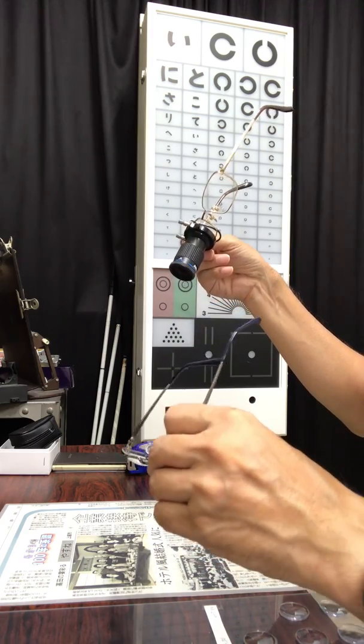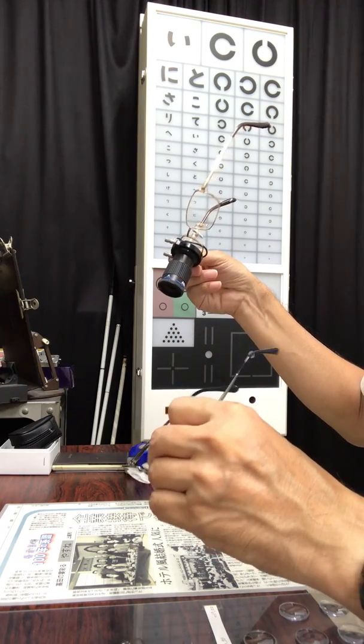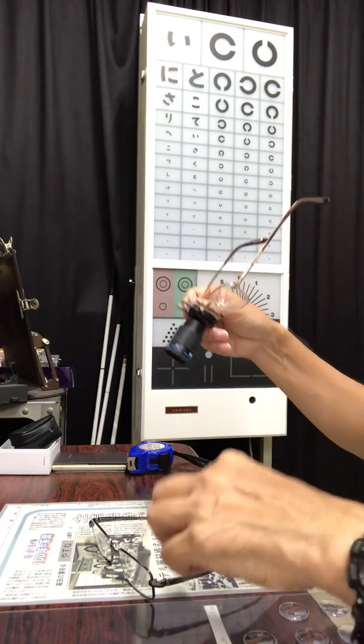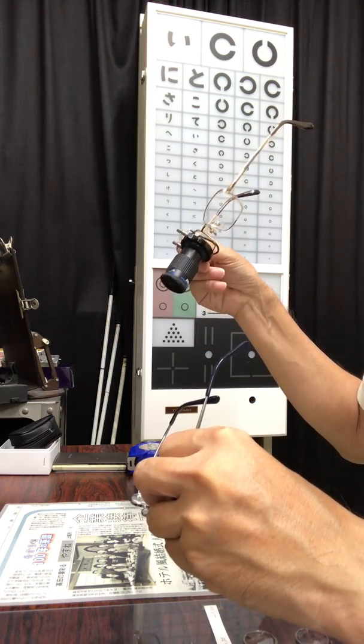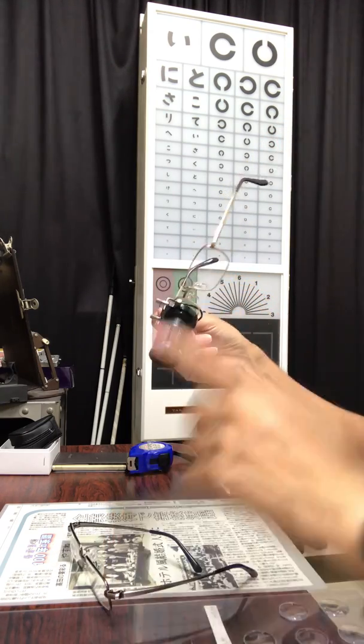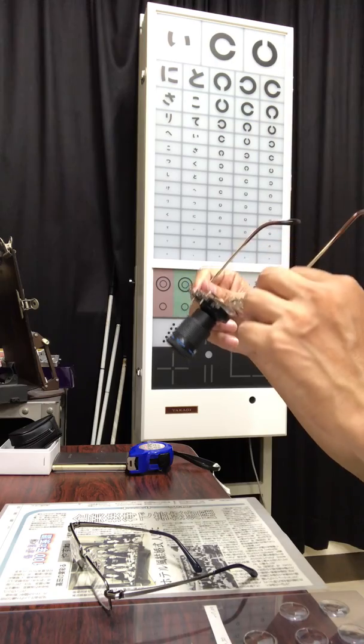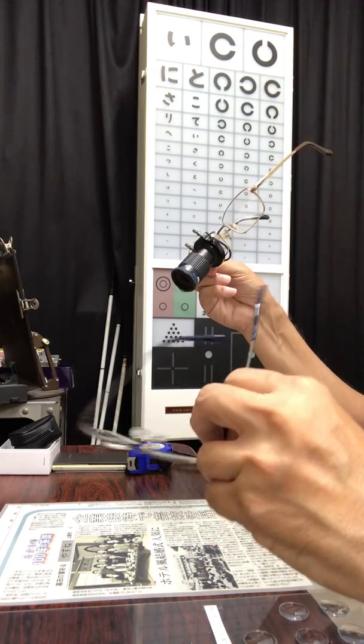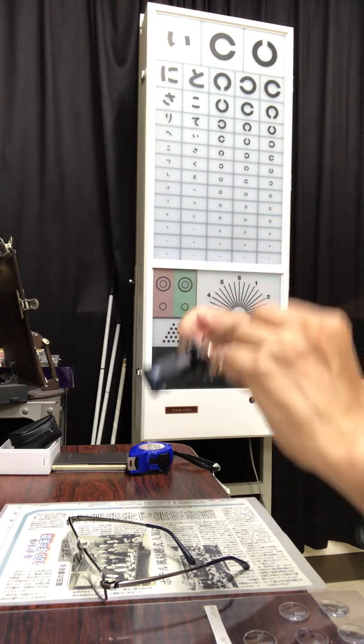The cost is very cheap in terms of this simple lens, and this telescope is a little bit expensive. But, these are very easy gadgets for low vision people. It does not have electricity, only an optical device. I hope you can enjoy these optical gadgets for low vision people. Thank you.